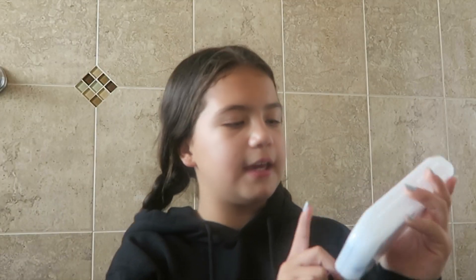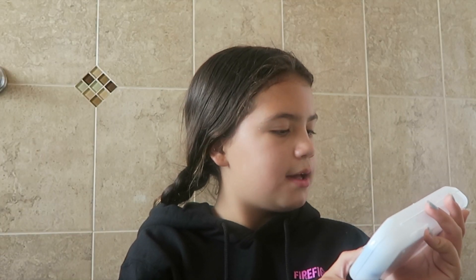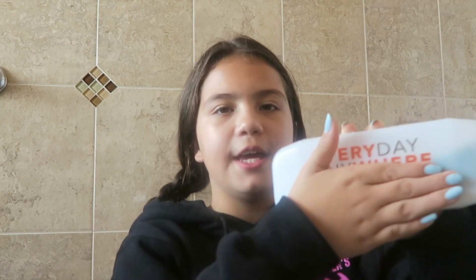So this is the kit that they gave me. It says on here 'everyday anywhere,' so I'm going to be bringing this on vacation. The first thing — which is actually the most important thing that the dentist said — was this. I'm pretty sure this is called wax.